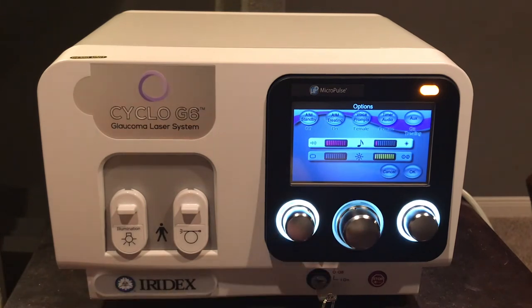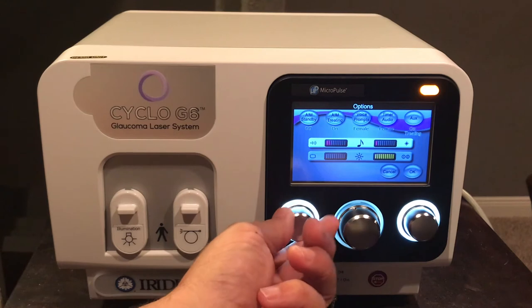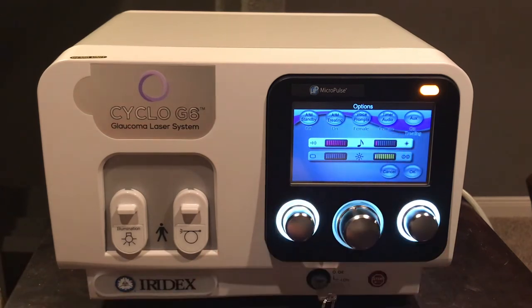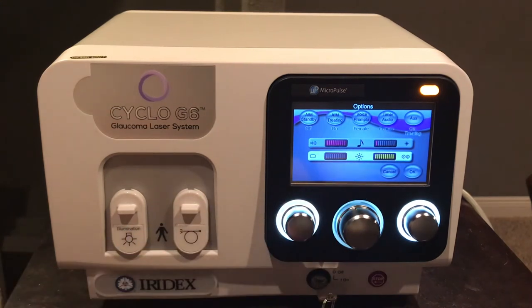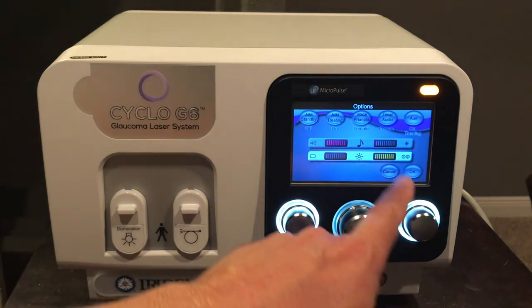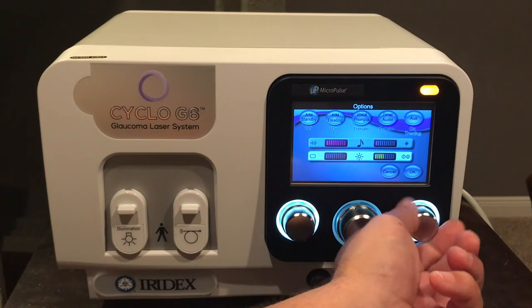There is also an auxiliary timing setting, currently set to on. The sound volume can be adjusted up and down depending on how loud it is in the OR. Illumination can also be adjusted up and down — you can set the illumination for the screen to be brighter, and also for the back lighting of all the knobs.